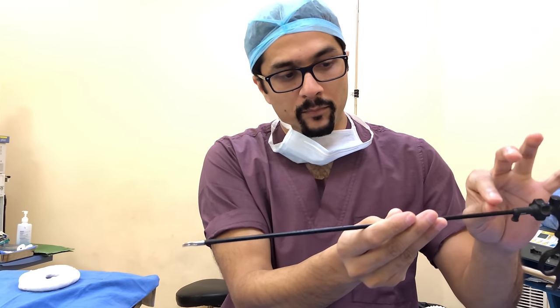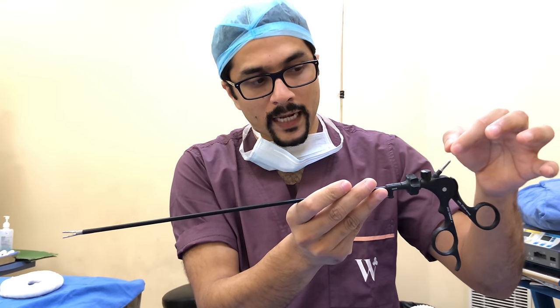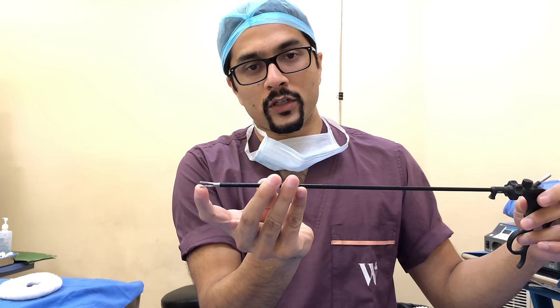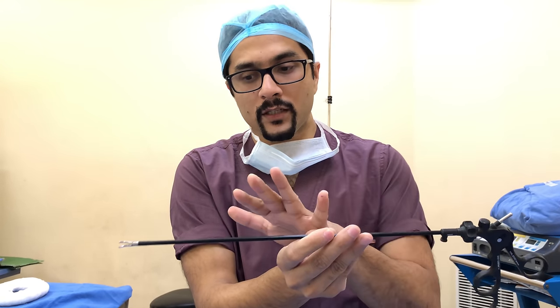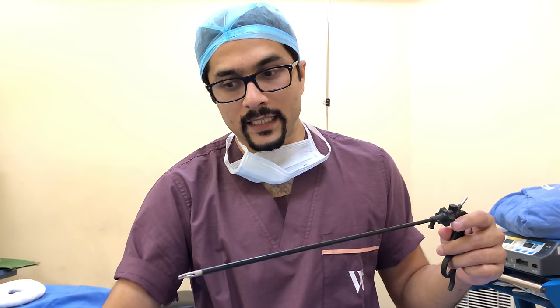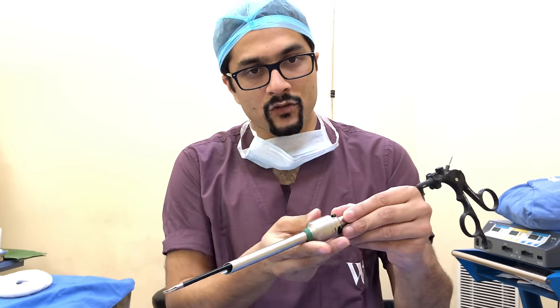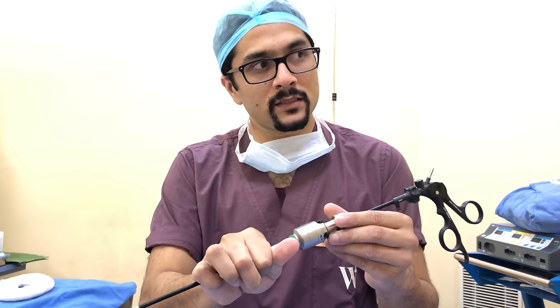The reason these instruments are black is that they are coated with insulation. When I attach the cautery, I want it to act only at the tip — I don't want current to leak out. If the insulation breaks off, current can leak out, travel into the metallic trocar, and since the trocar is in contact with the skin, it will burn the abdominal wall. This principle is called capacitance, and it has been asked in the exam.